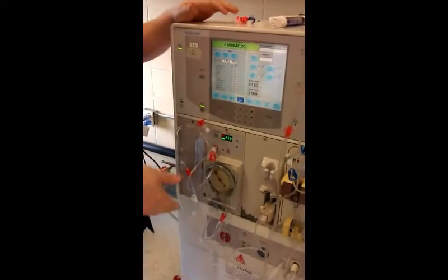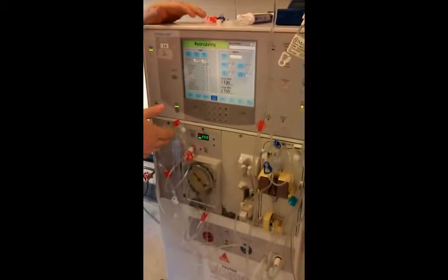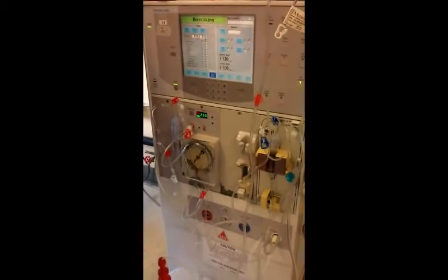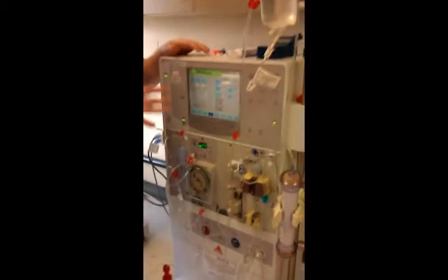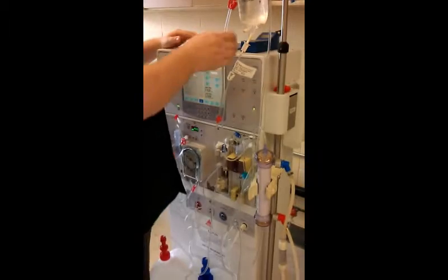The policy at the clinic at one point was 250; it now could be 400 for this pump speed — something we'll verify. But for today, let's just say that it's 250. I'm recirculating, so that's what's happening right now.